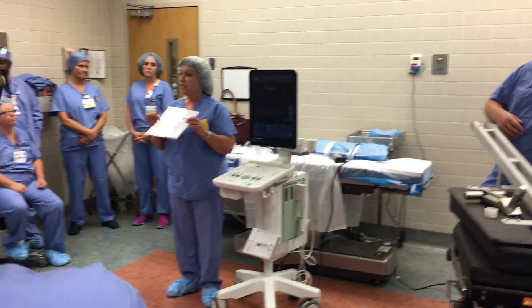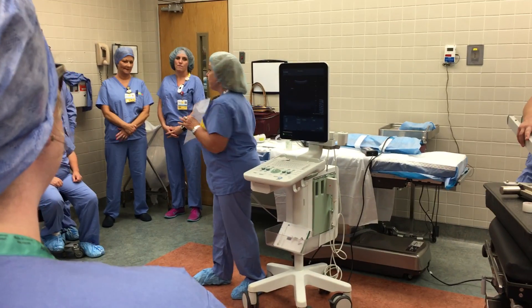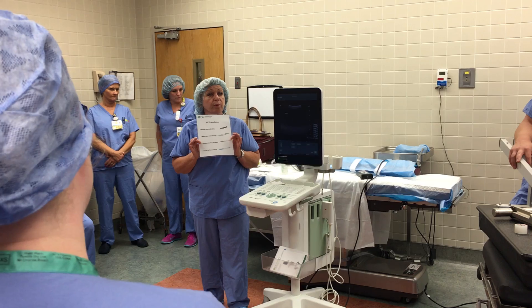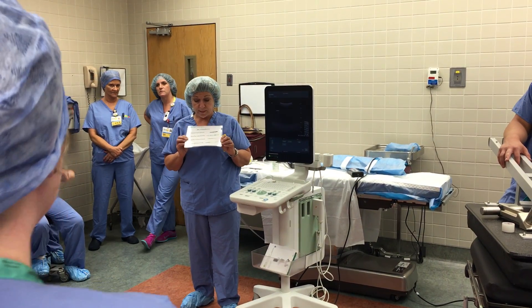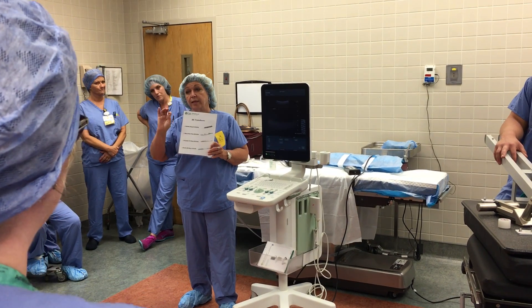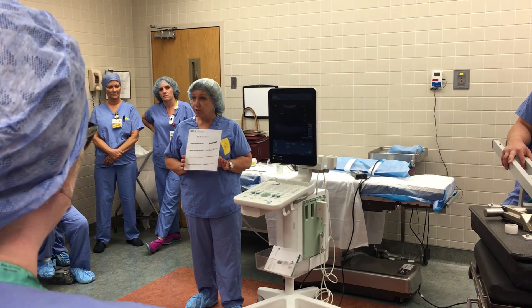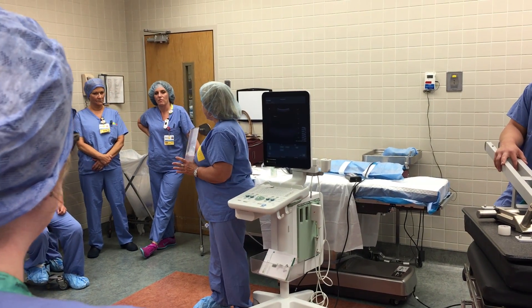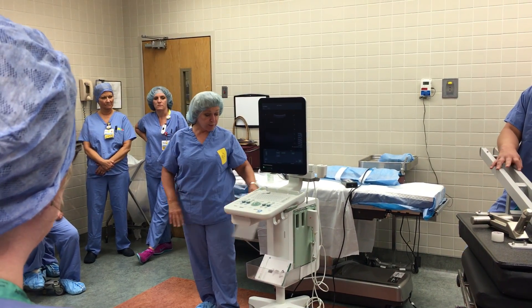You have two probes of everything except the neuro-probe, for turnaround time. The third one is the prostate probe — they're going to be doing prostate biopsies. And the last one is the brachy-probe, where they go in and put seed implants in the prostate for radiation. So these are your four probes total.